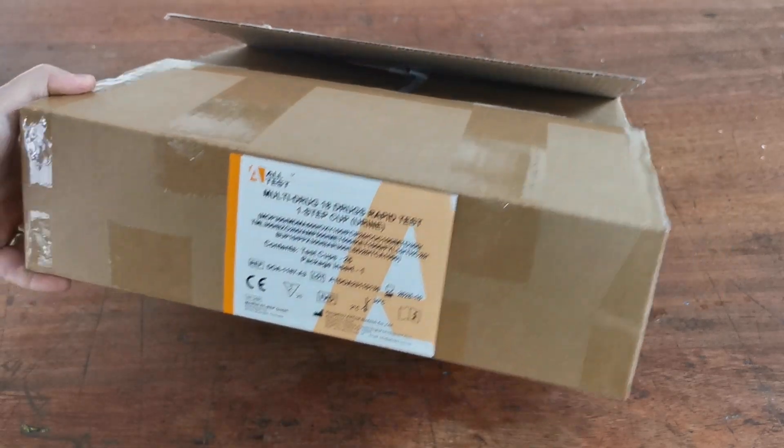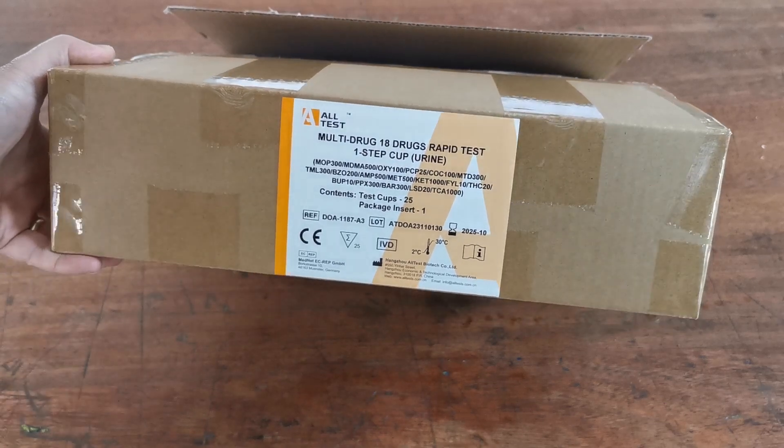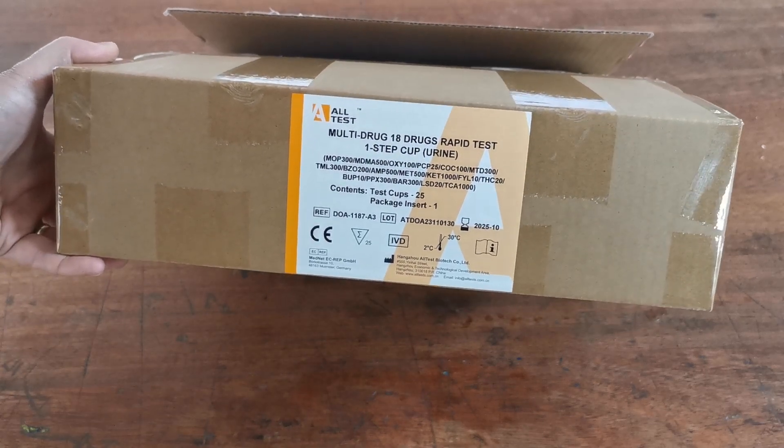This is the standard shipping carton of 25, so this is what you'll be presented with if you buy a standard full carton of 25.